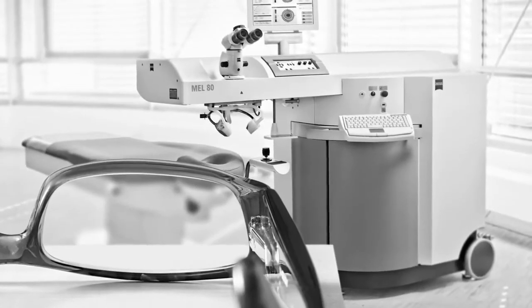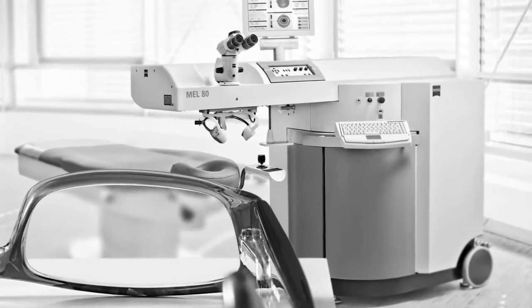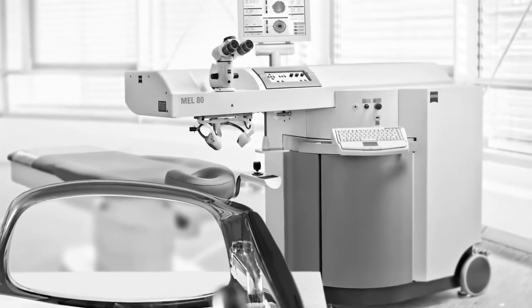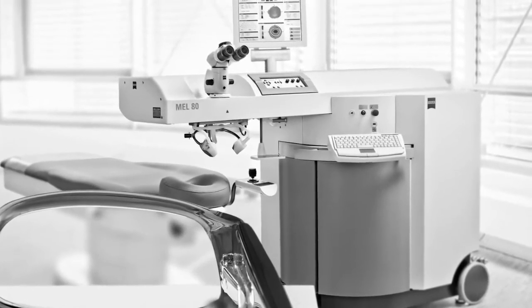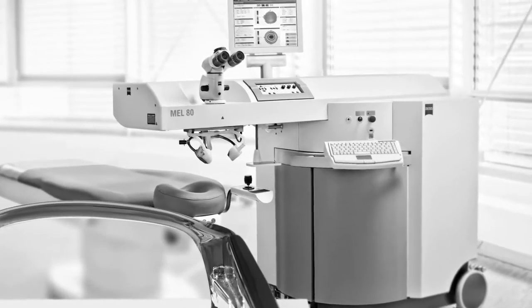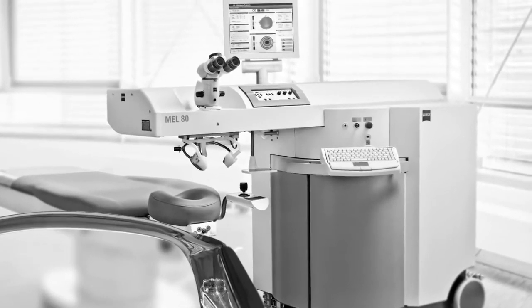What's more, PresBeyond Laser Blended Vision is tolerated by far more patients than other presbyopia compensation approaches, by approximately 97%, as compared to only 59% to 67% for conventional monovision.